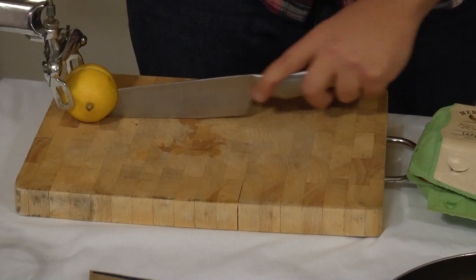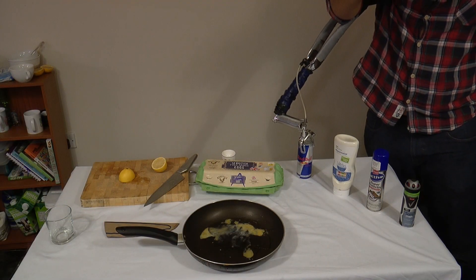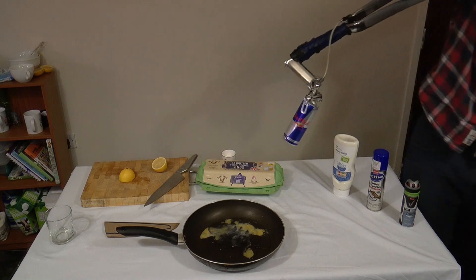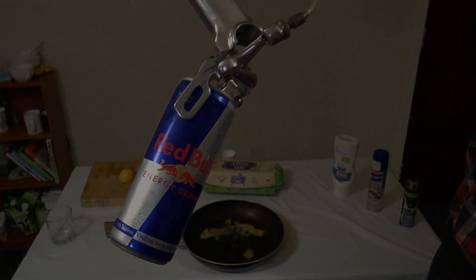Finally, I'll develop a Lego-like instruction pack with an accompanying 1–2 week training program. We will find entrepreneurs in these communities and teach them how to make the prosthesis, build a business and get the product to the end user.